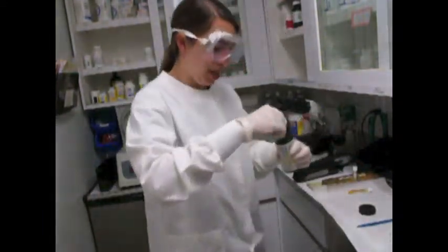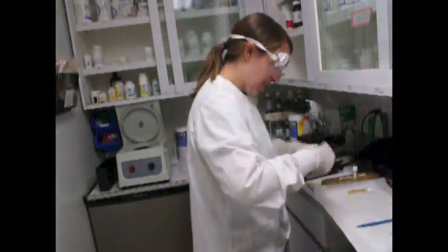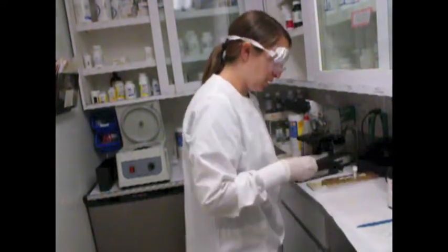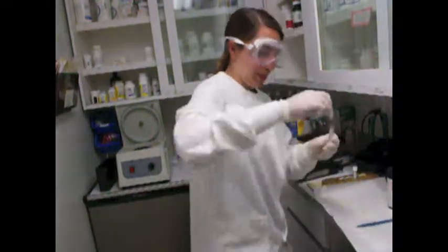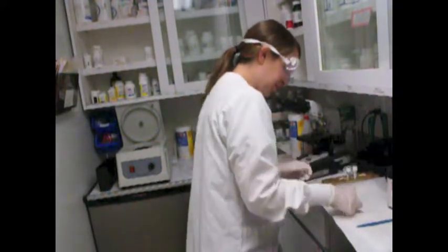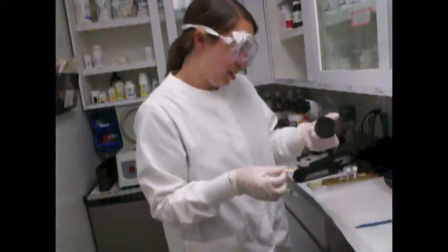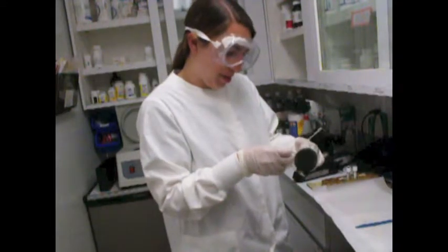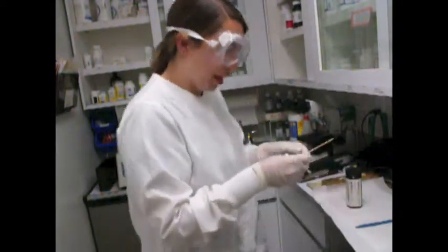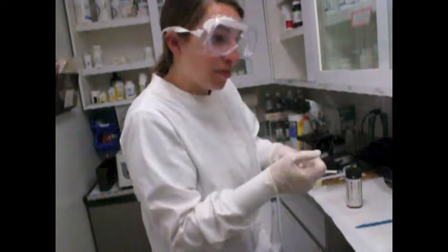So what you do is you take out the stick. Here's my stick here. And I'm going to put 1 drop onto each colored line here. So I'm going to go back in my syringe, take out some of my sample, and now each has to be read at different times. So I'm going to start here. My glucose is read at 30 seconds, so I'm going to start from the bottom. And I have my timer over there.